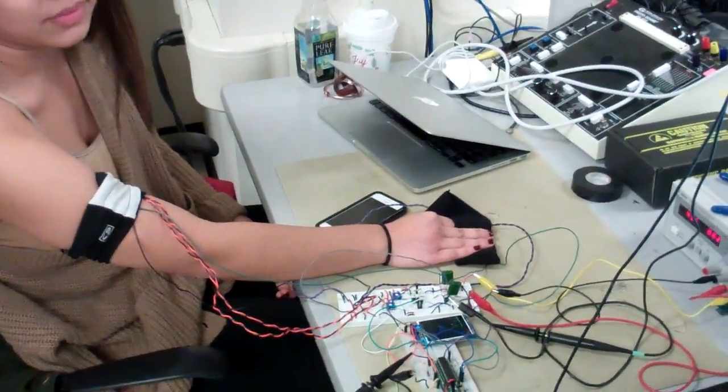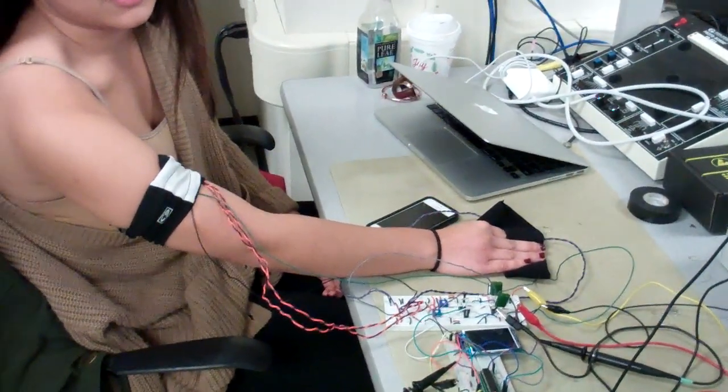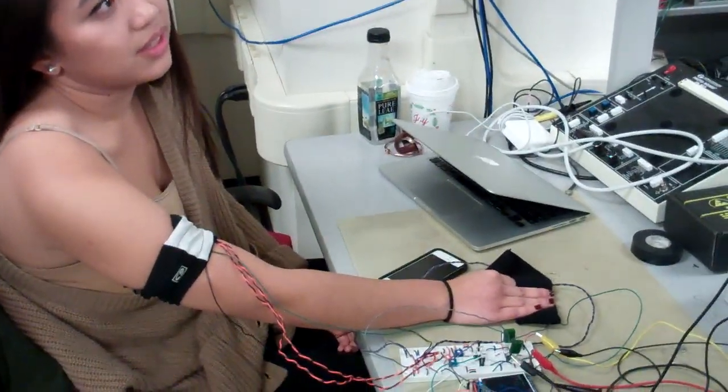If you're going to do much more of this, you might want to do the same thing — use a finger clip — so motion is not a factor. Right, exactly.